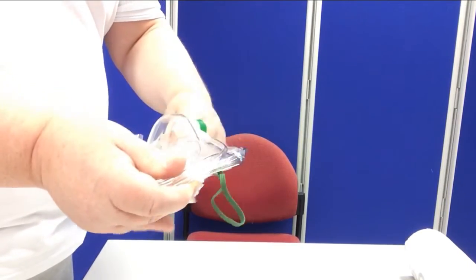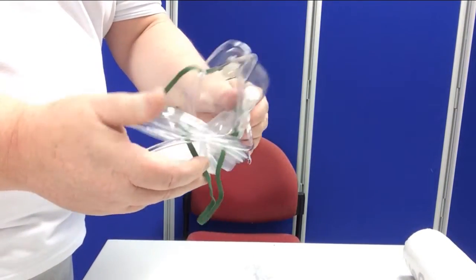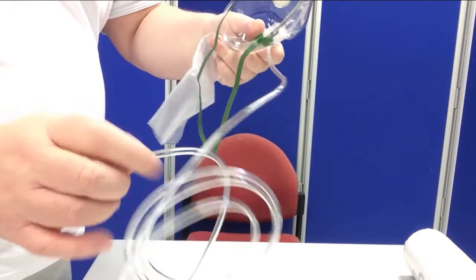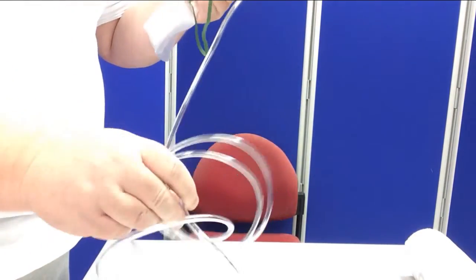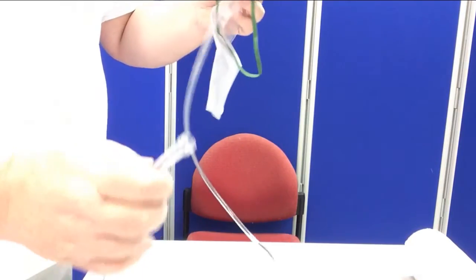When you take the mask out of the bag, you'll find it's all wound up. It can be a bit of a problem sometimes to unwind it. Just take your time and you'll get there much more quickly.